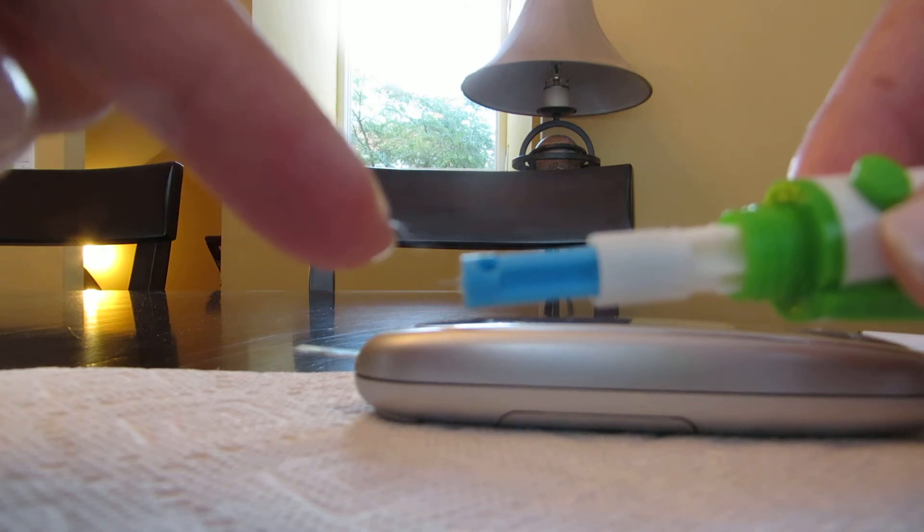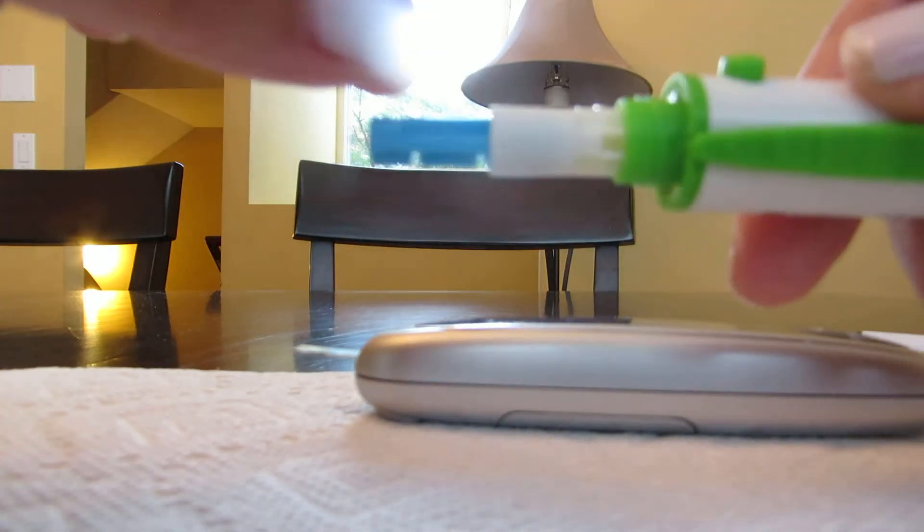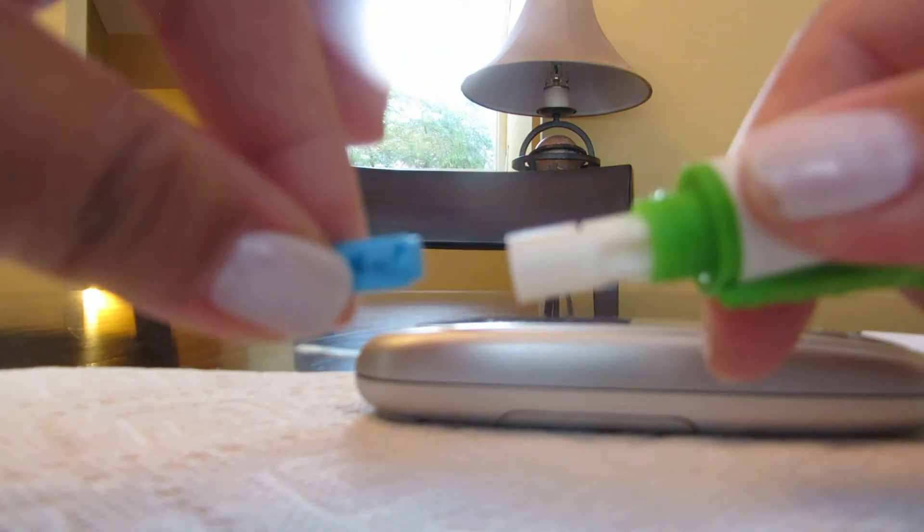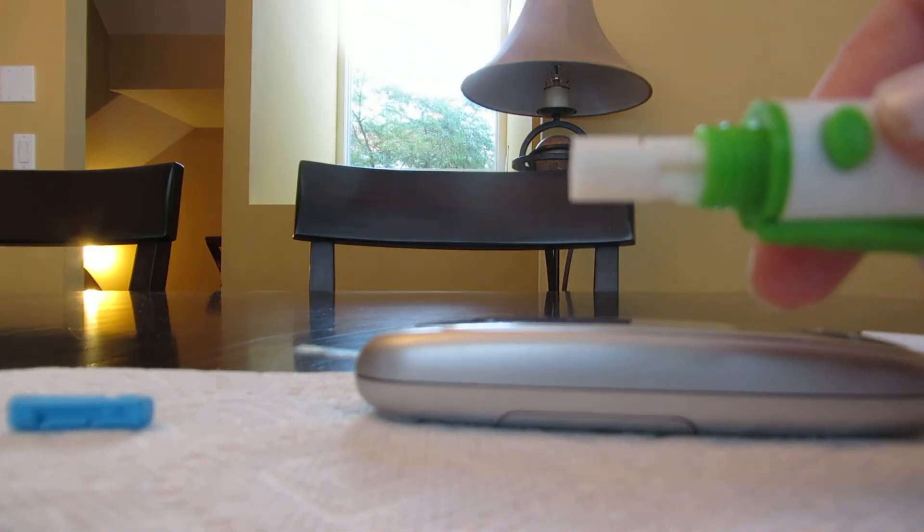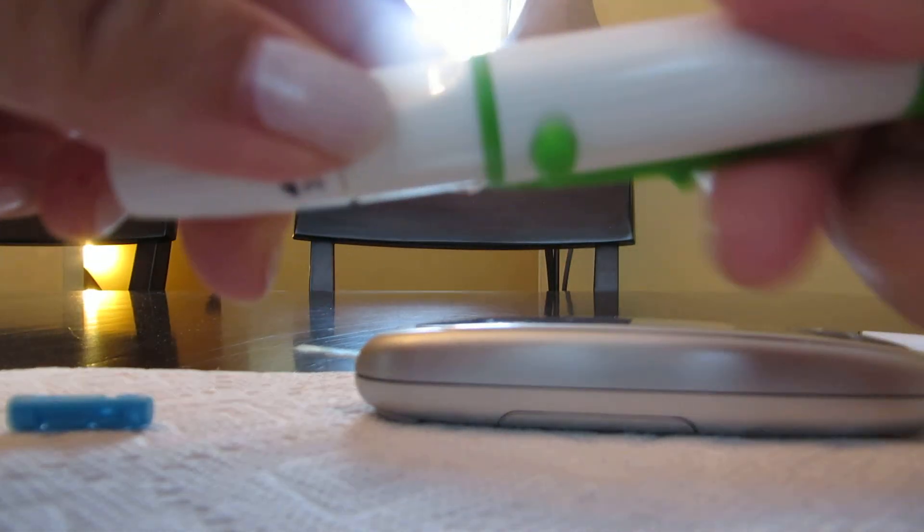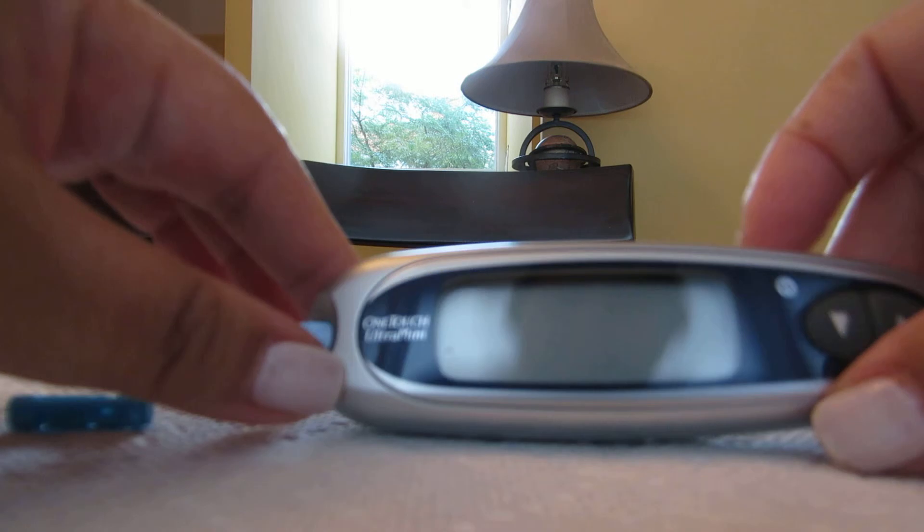If you only check sporadically, make sure you test daily. This is how you take it out, and then you just put another one in when the time comes. That's pretty much it.